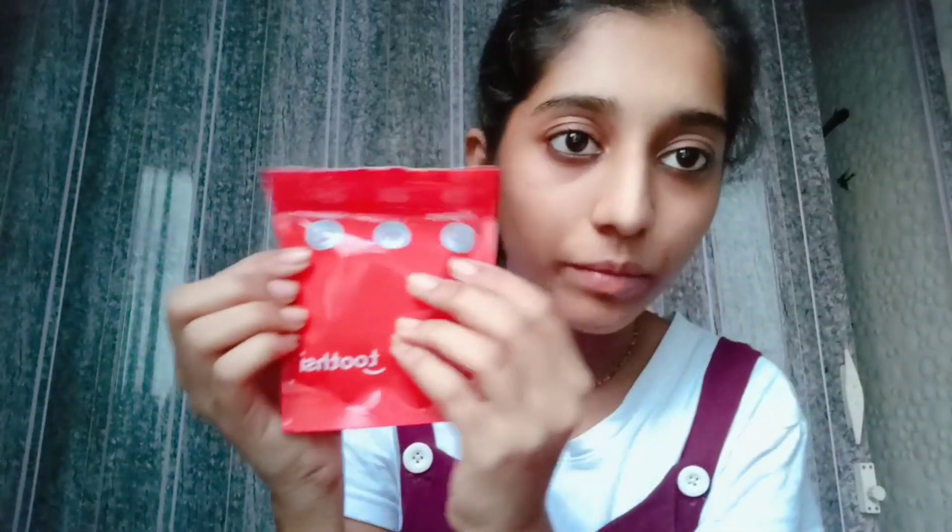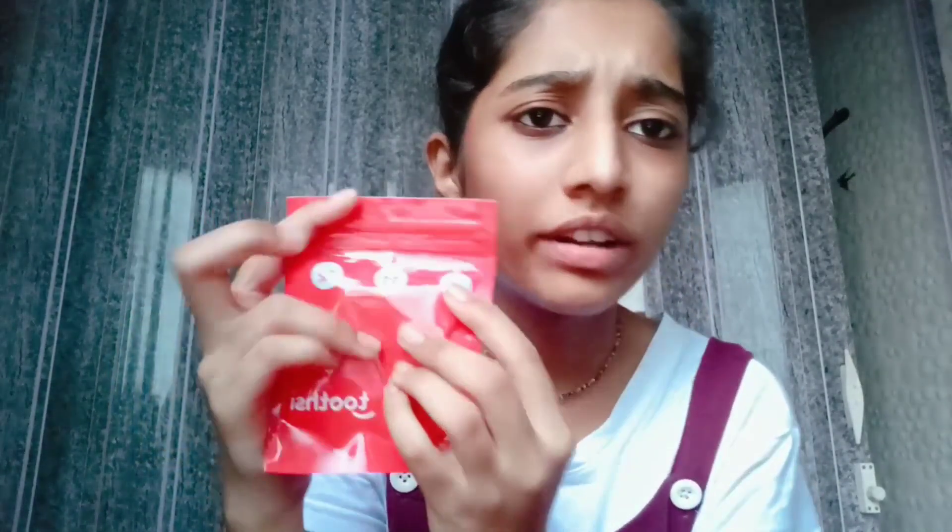This is what the aligners look like. Here is a tracking number. This is the lower aligners - sorry, this is upper. It was great, and again they give you a little box. I always carry my bag - this is the cute little box. When you remove aligners, make sure you put them in this box because sometimes people put them here and there and they get misplaced. Here it is safe with no tension.